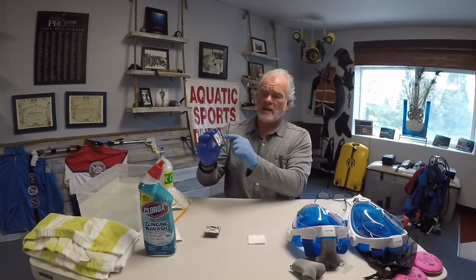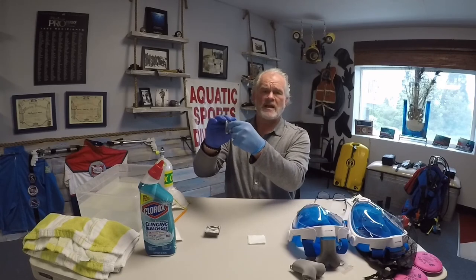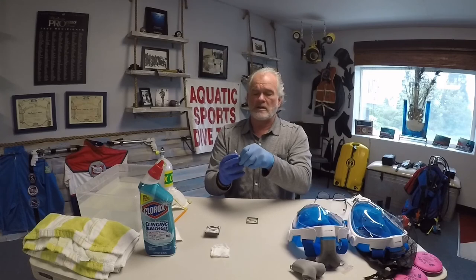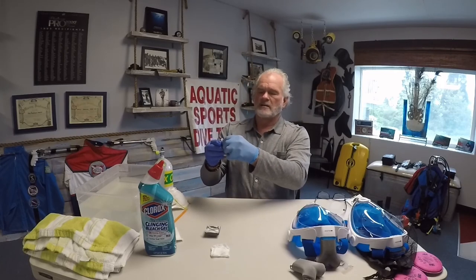Again, that'll be protocol for the clinics and hospitals. To replace the filter, take a pair of scissors and cut the material into a square — you'll have a template with the dimensions. Then replace the old filter inside the cartridge. There is the cartridge itself and a retaining clip; the retaining clip has two bowed lines. Pinch it and that releases the pressure so the clip comes out. Discard or clean the old material, take the new material, place it in with all edges even, and it's good to go. Press it down, take the retaining clip, press it on one side, come to the other side, squeeze down, and it's ready to go.